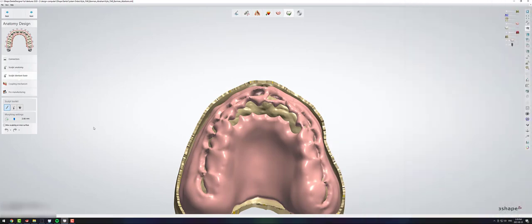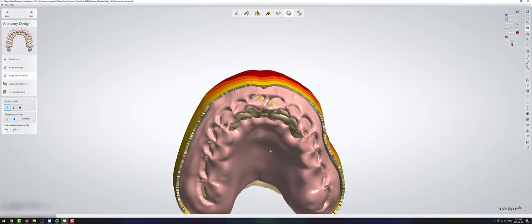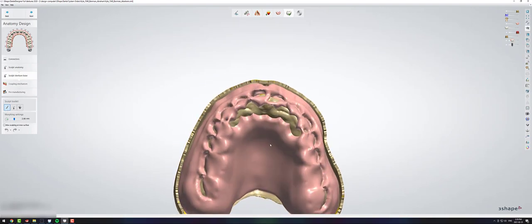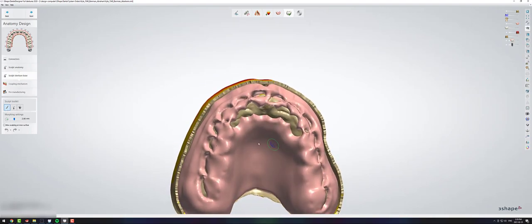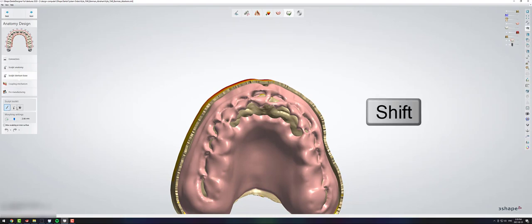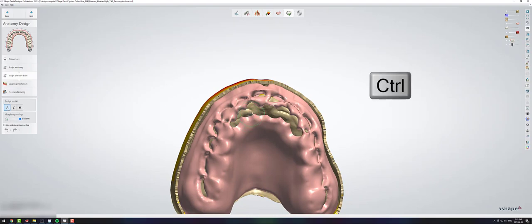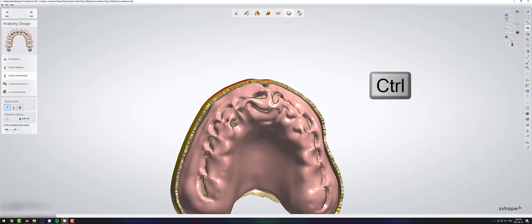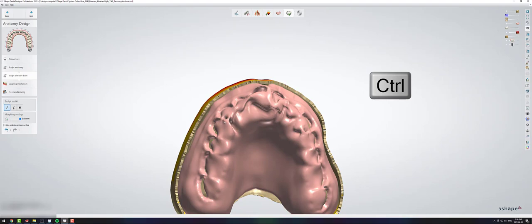Sometimes when you're waxing up a really tight case, you get your wax up that comes up like this. So you're going to go into your morph tool and you're going to click shift and roll the rollerball so it's as big as possible. And then you're going to hold control and you're just going to drag up in all of those areas. Just make some nice little mountains everywhere where there's a hole. It's going to look crazy and wonky, but trust me, this is the fastest way to fix this.